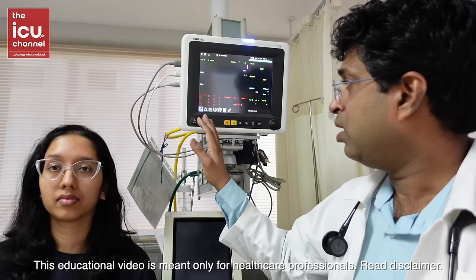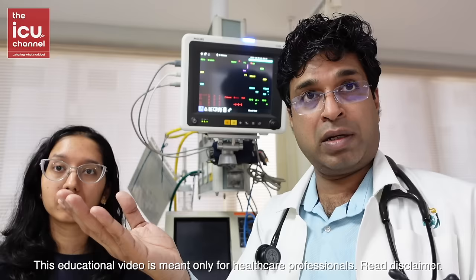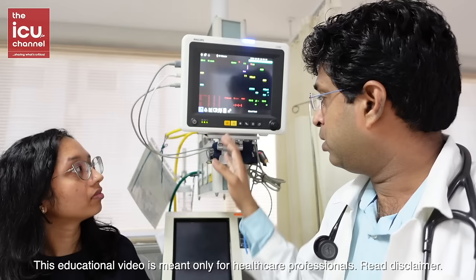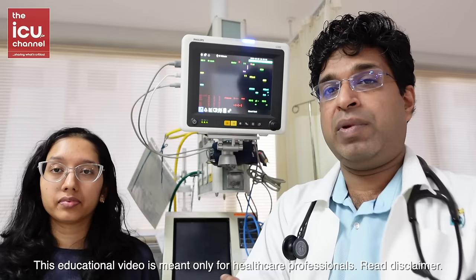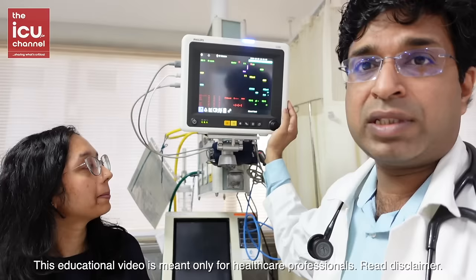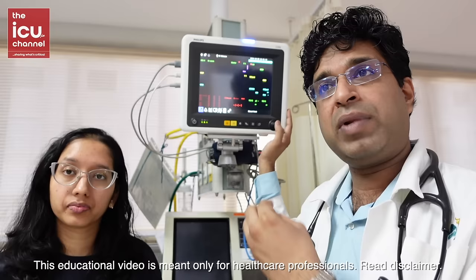The monitor has alarm settings — for example, alarm if heart rate goes below 60 or above 100, or if arrhythmias like APCs occur. When an alarm comes, check why it's triggering. You can silence it immediately or for a set duration. You can also manually inflate the BP cuff at any time using the inflation button. Don't be scared of the monitor — go and explore the controls and settings; it gives a lot of useful information.